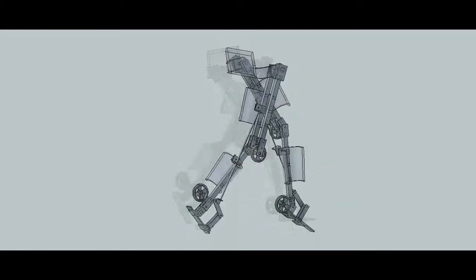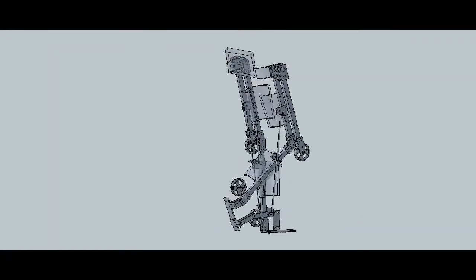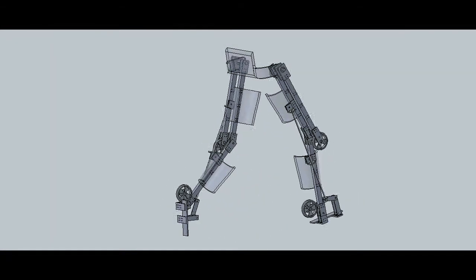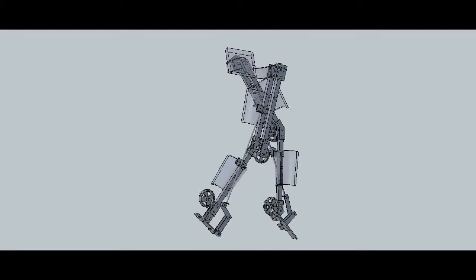I utilize the same set of motors to actuate the hip joint of the exoskeleton and the rear wheel of the wheelchair.